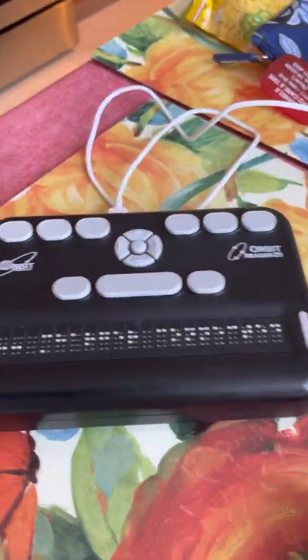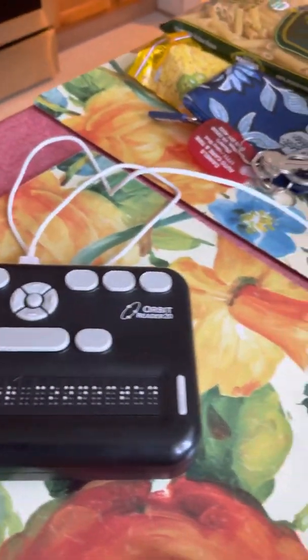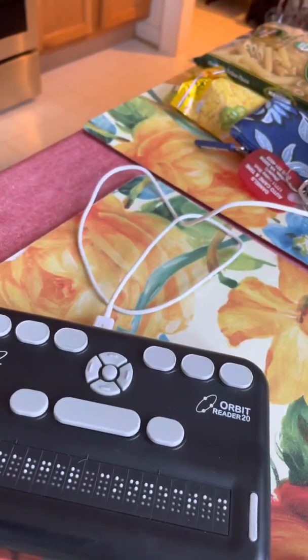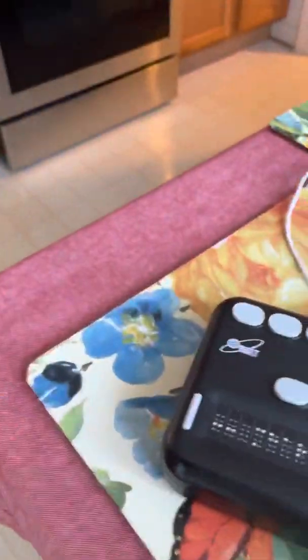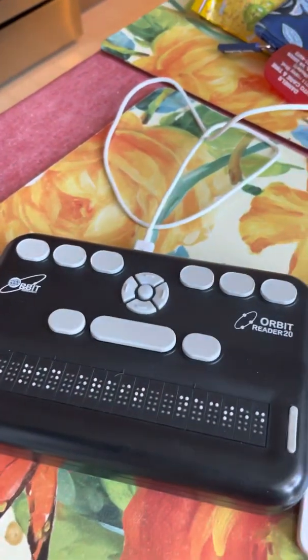This is my small 20 character terminal. I would use my bigger, twice as many cells 40 character terminal, because it works really well with computer setups, but there's some driver issue and I haven't figured it out yet, but I've got it all working with the smaller one though. In any case, so I'm going to put it in braille.